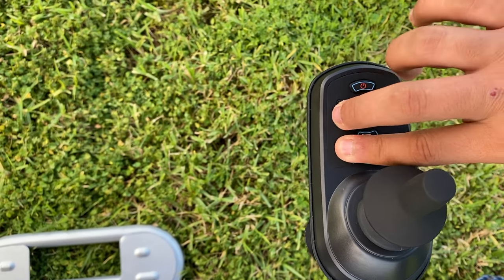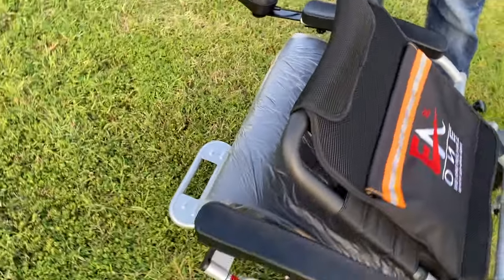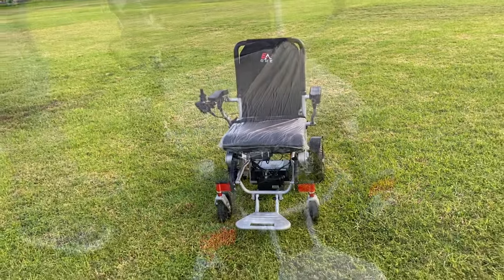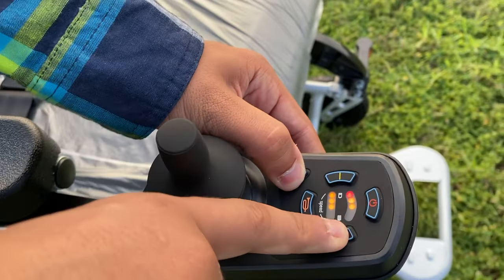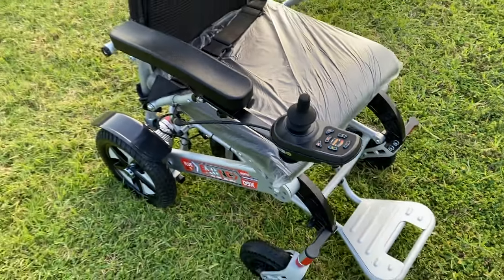Press the unfolding button — press and hold it for two seconds and your wheelchair will unfold. Then press and hold the plus button.